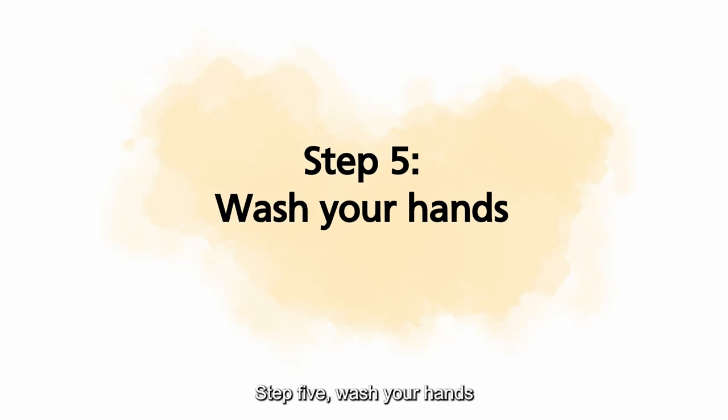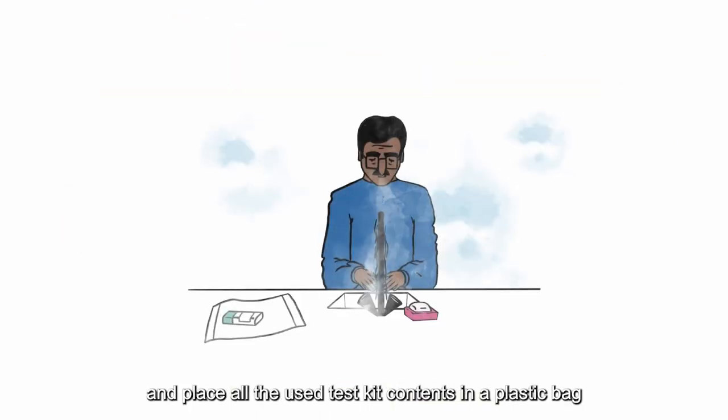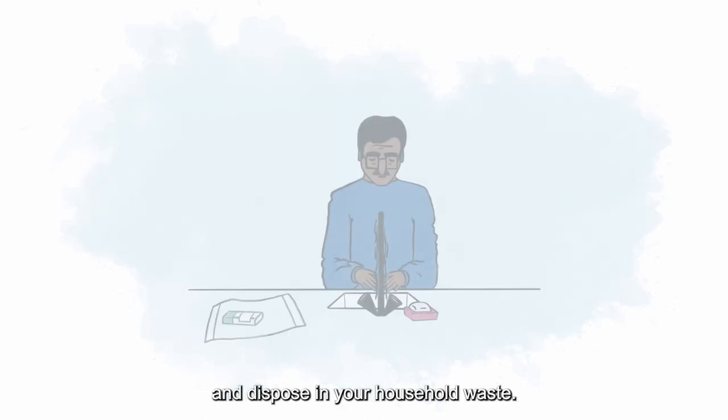Step 5: Wash your hands and place all the used test kit contents in a plastic bag and dispose in your household waste.